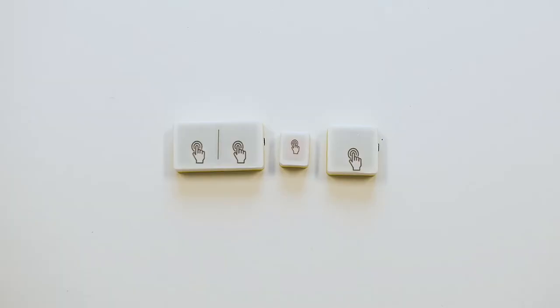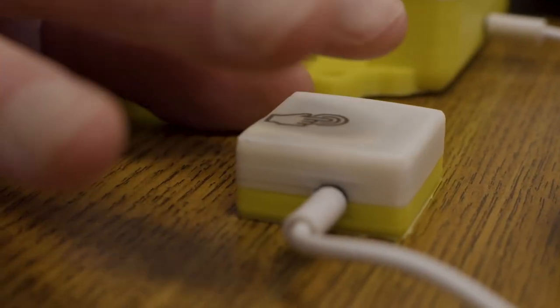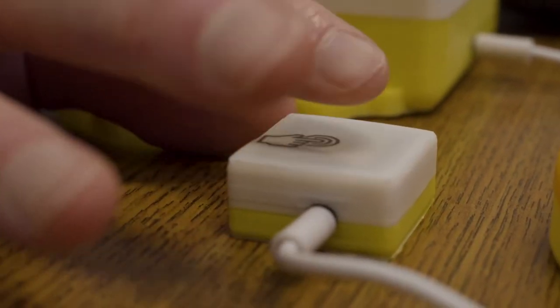Let's explore the next peripheral: a touch sensor. This touch sensor has been programmed to perform a mouse click. You activate it by pressing on it with one finger. When you let go, the sensor will be ready for the next input.